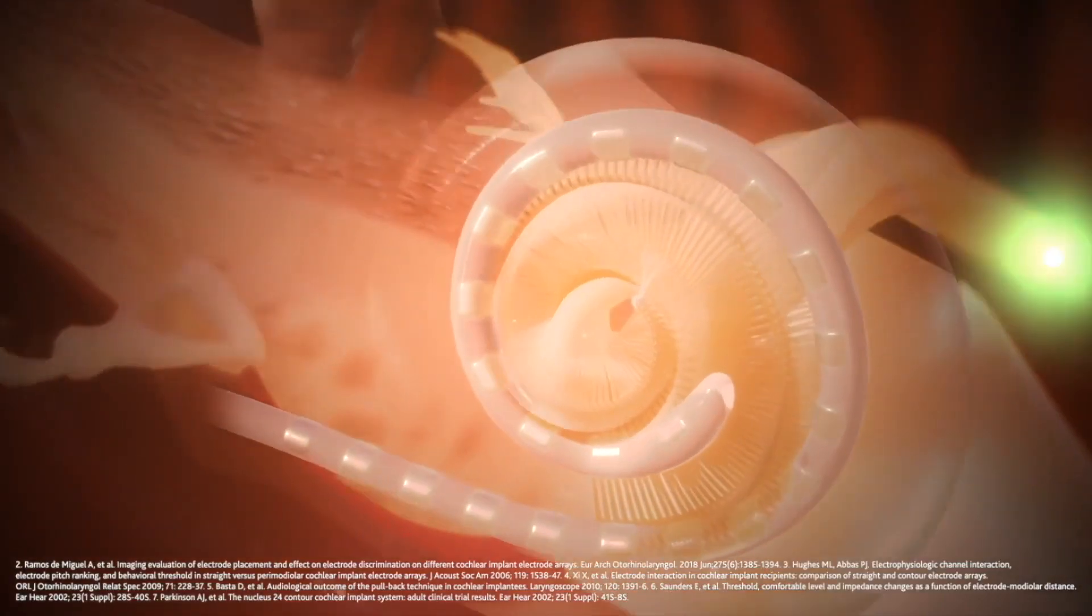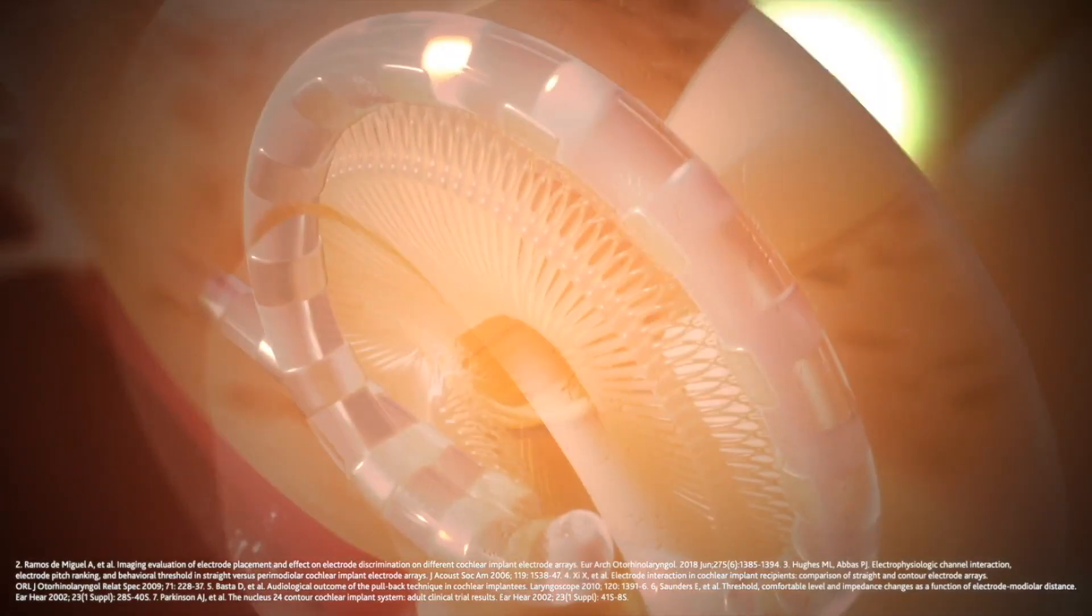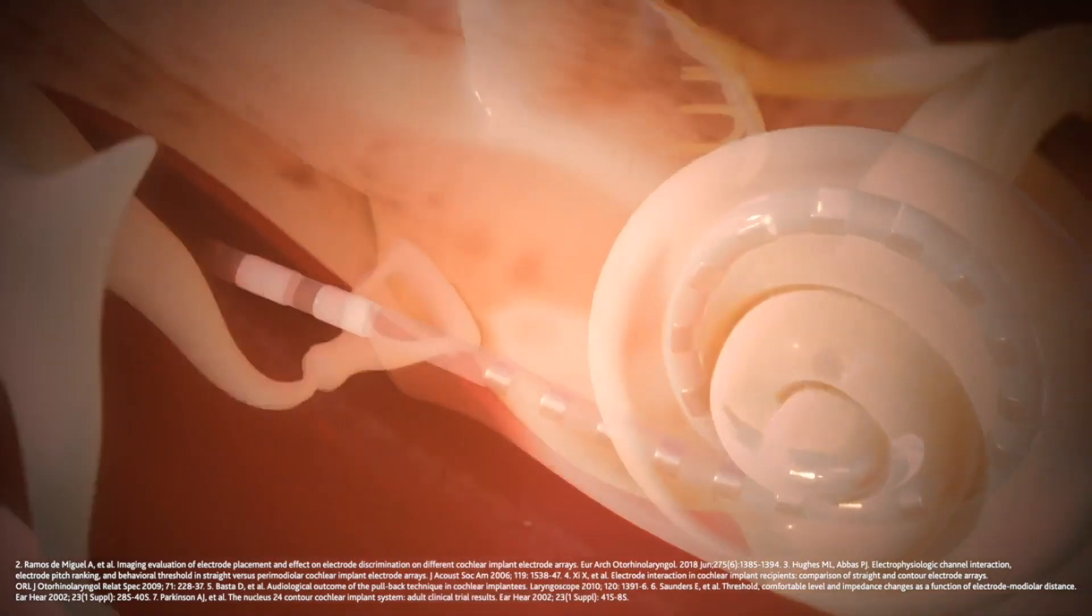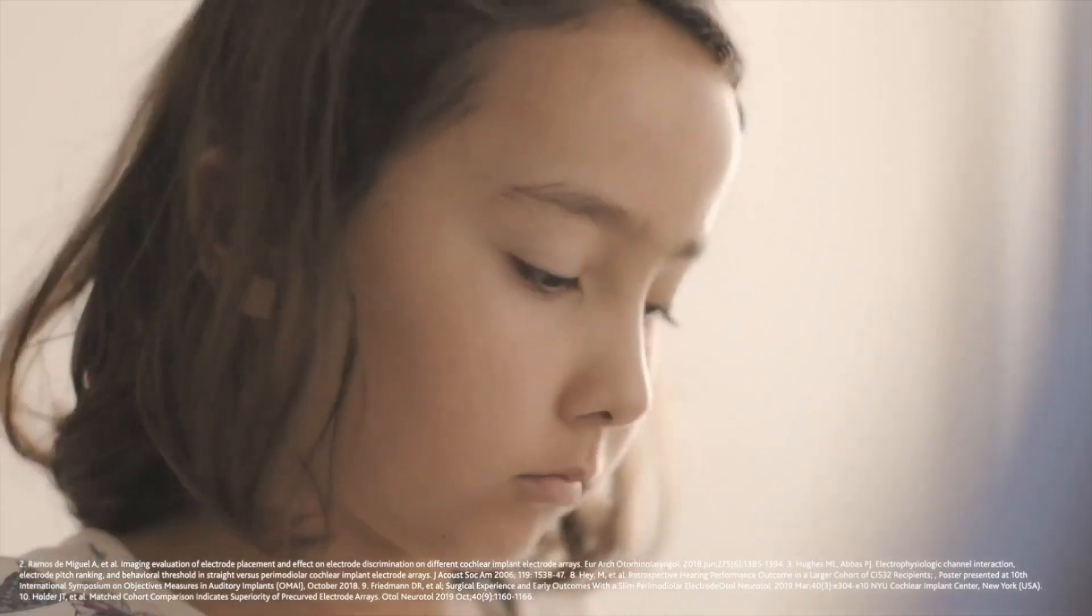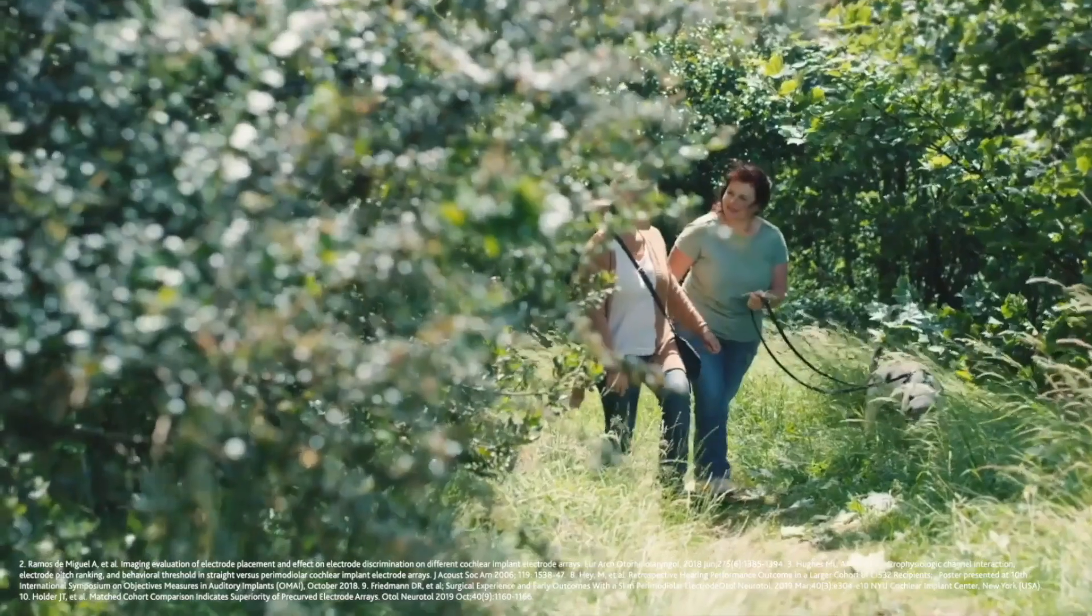Clinical evidence shows that electrodes placed closer to the hearing nerve can deliver electrical stimulation more precisely and efficiently. Studies show that this leads to better hearing outcomes, including improved speech recognition and understanding in both quiet and noisy environments.